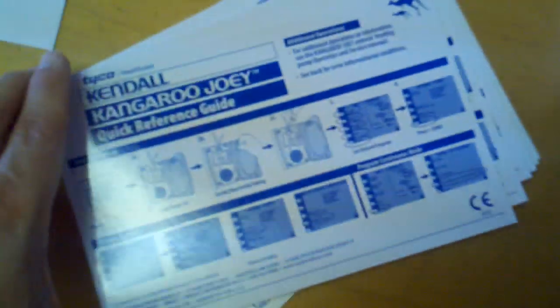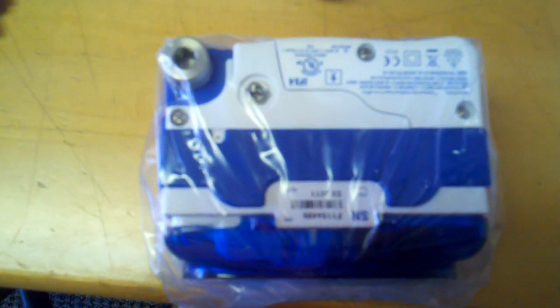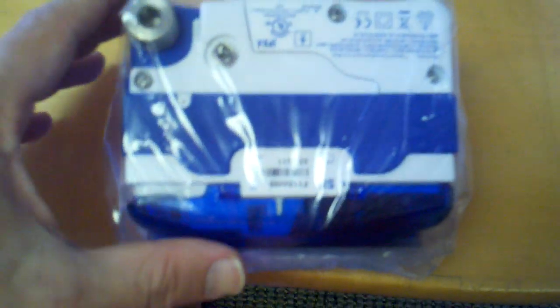Now I can plug it and turn it on and show you how to use it. But I didn't realize that there's a quick reference guide. This is actually the first one that I've gotten in, because I wanted to take a close look at it and see if this is the high-end ones that people are saying.